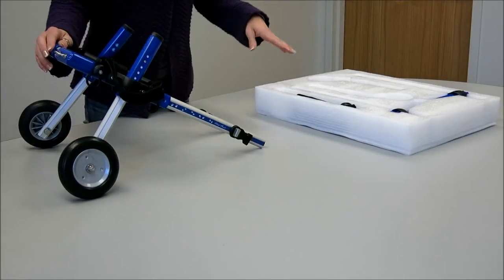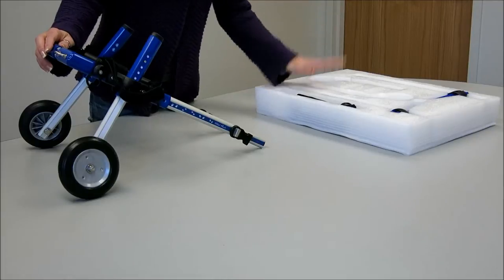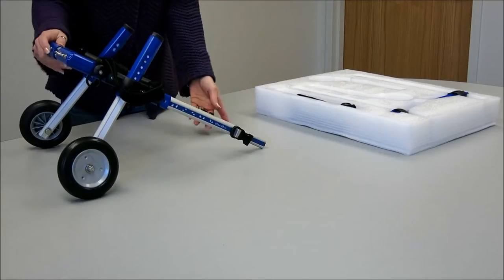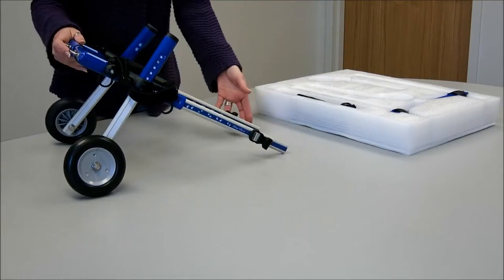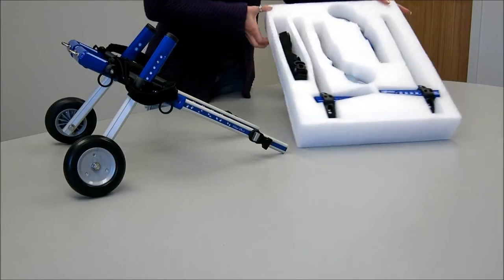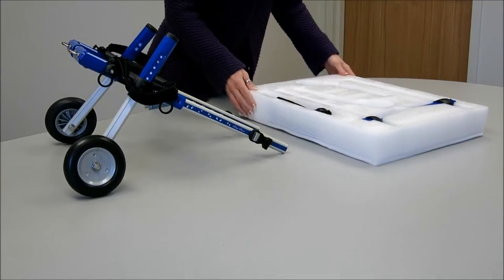Okay, today we are going to show you how to attach a front extension to the mini cart. This is your existing mini cart. What you're going to get comes in a container like this.